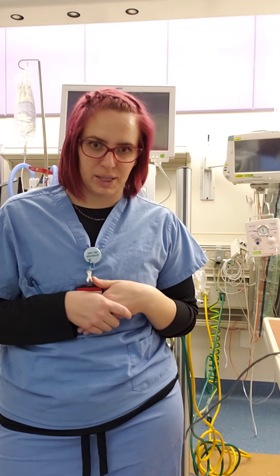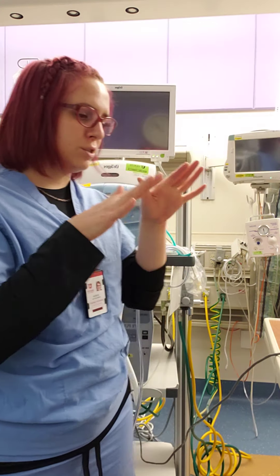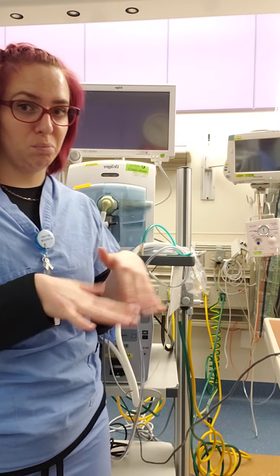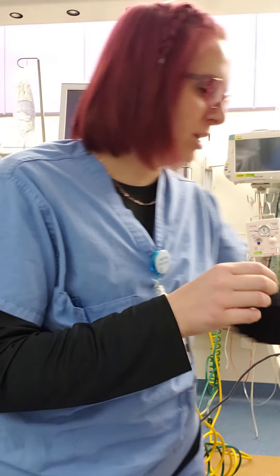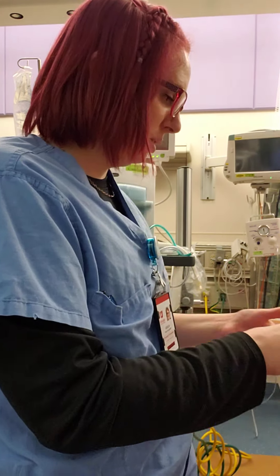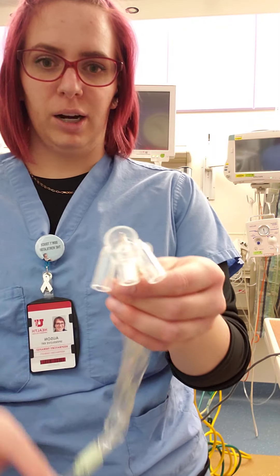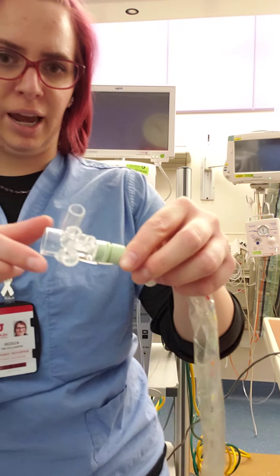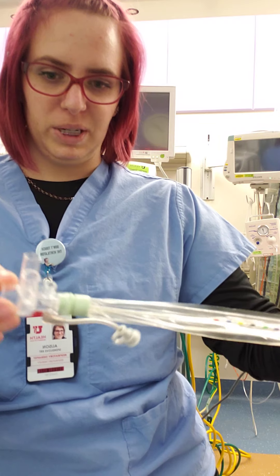That's why we have the Draeger ventilator that hooks into it, so essentially you're running two ventilators at the same time. Starting out, we have our inline Ballard suction catheter, which is a little bit different.